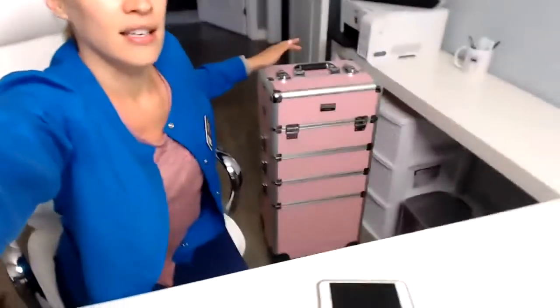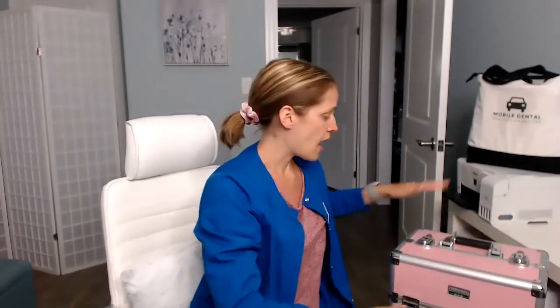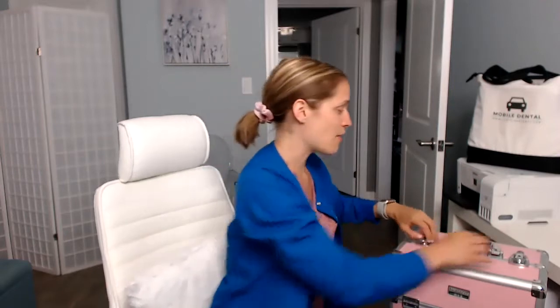I love that it's on wheels. So this is the cart — it's a really great size, it's not heavy, it's super fantastic. I figured moving the camera was easier. Now I'm going to bring it over here and show you guys what this is all about.